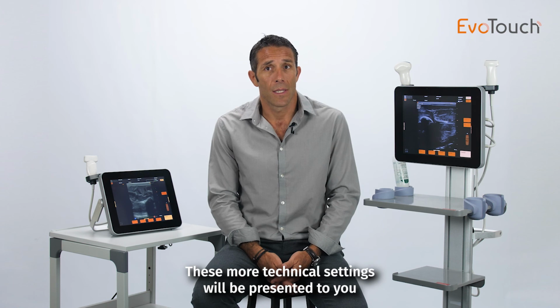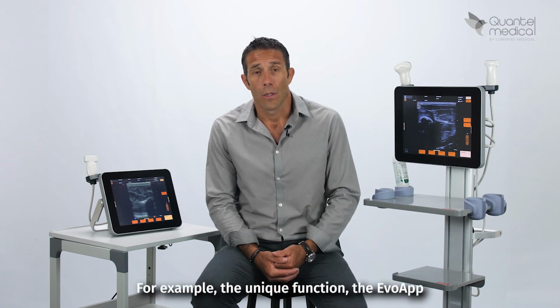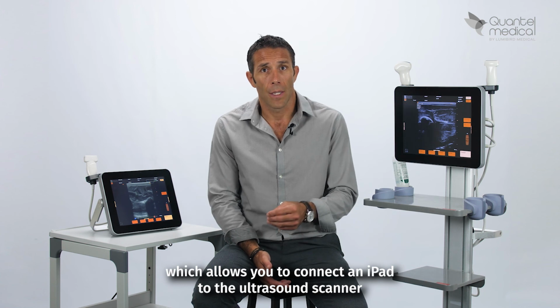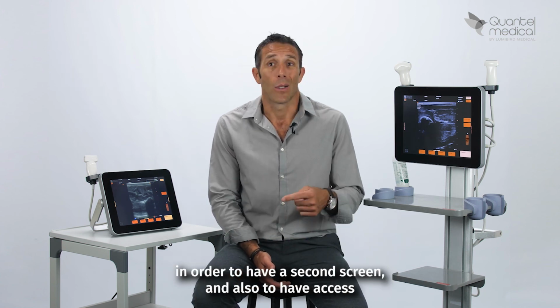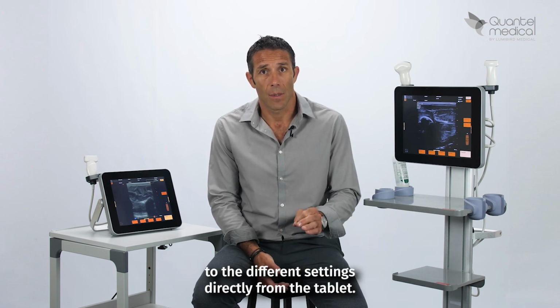These more technical settings will be presented to you by our team during the installation of the ultrasound scanner. For example, the unique function, the Evo app, which allows you to connect an iPad to the ultrasound scanner in order to have a second screen and also to have access to the different settings directly from the tablet.